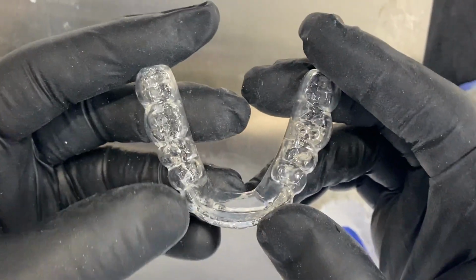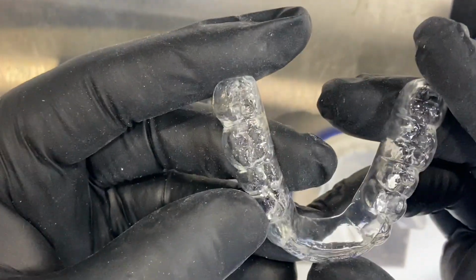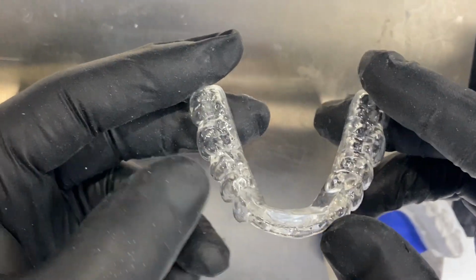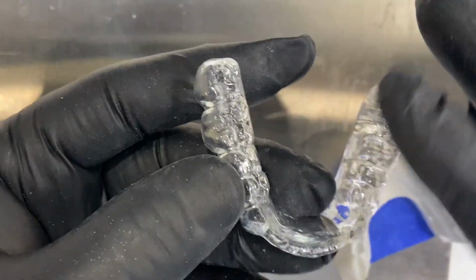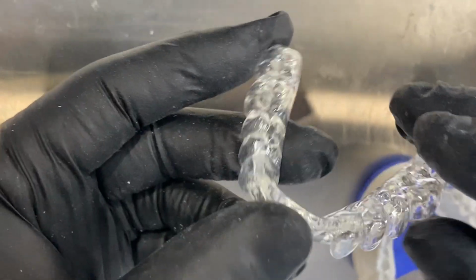Important to understand about the two different products are the properties of each one. With PMMA material, we have the alternative to reline it, internally or externally if you want, for feet or for any other reason, or the occlusal surface you want to resurface, to the PMMA material you can add.